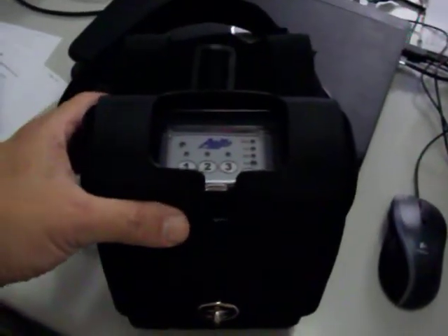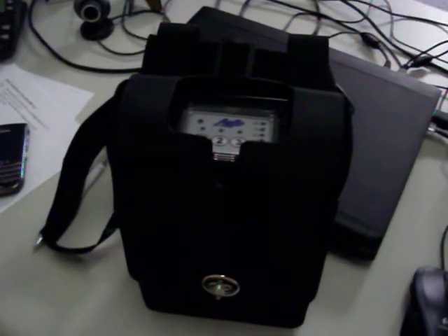Hi, you're looking at the world's smallest portable concentrator. To give you an idea of how tiny this thing is, I'm using my hand to basically show you how small this is. I compare it to the size of a binocular case. It comes in this very attractive black case which easily opens up. This is extremely small compared to any of the other portables — I'm basically holding it in my hand.